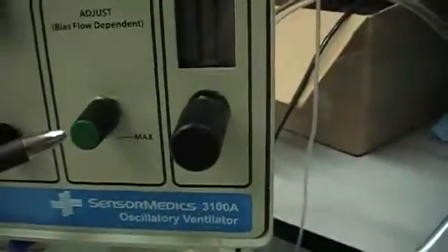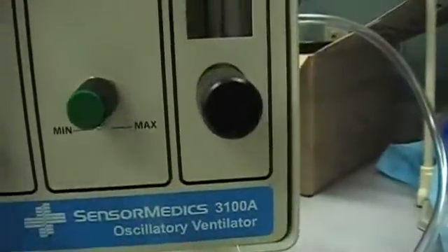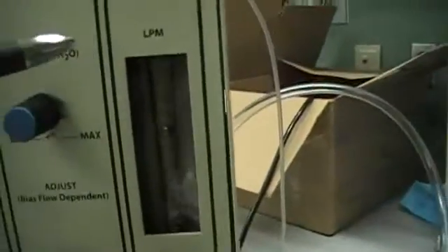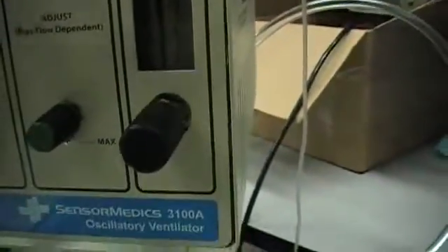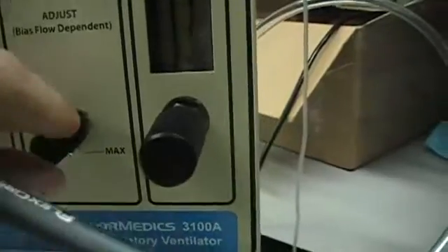This is how we control our mean airway pressure, which is displayed in one of the other corners. We have a set flow going through the circuit at all times, and we can set our mean airway pressure limit and our bias flow here as well.